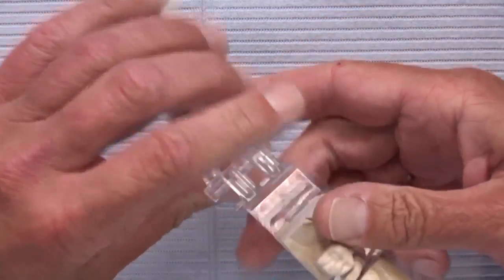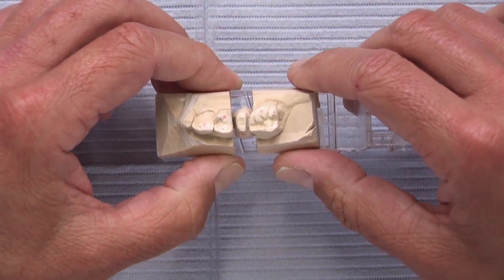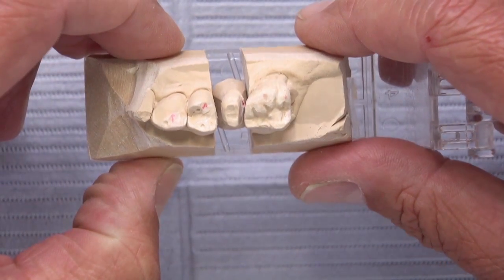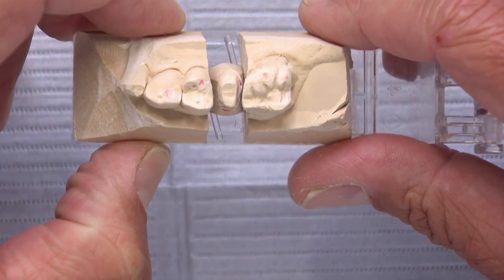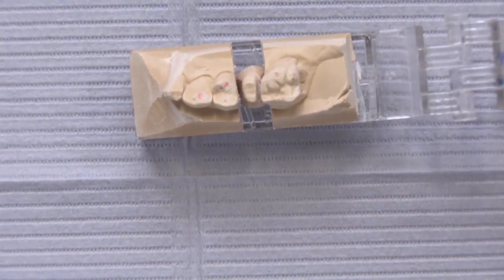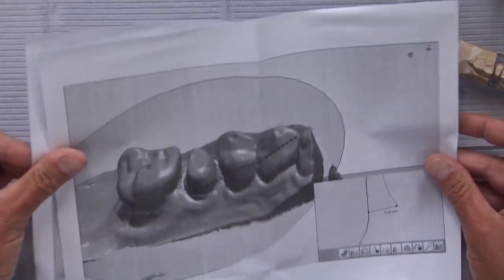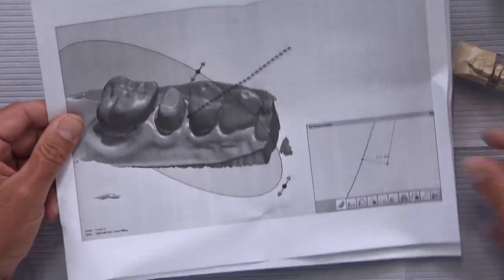This model is a prescription for a Bruxer crown on tooth number four. It allows us to immediately digitally design it and then mill it. But the issue, as you saw from the undercut sticker, is that we have some undercuts here. As we look back and forth visually we can see the undercuts as we try to see all the margins at the same time.